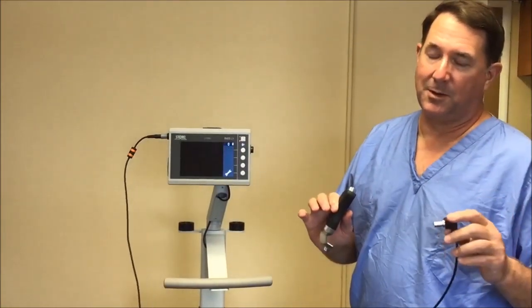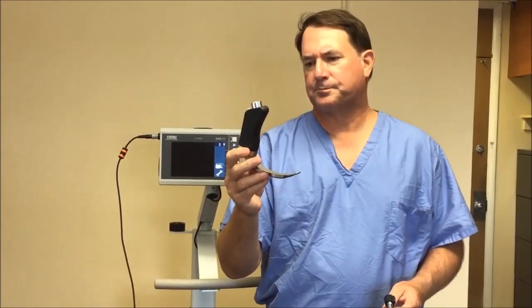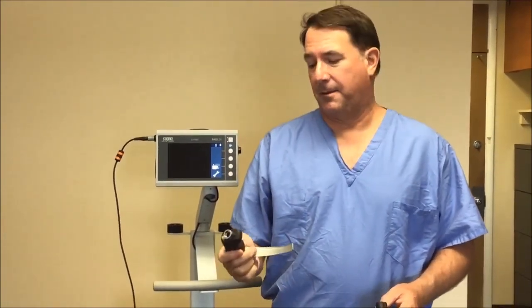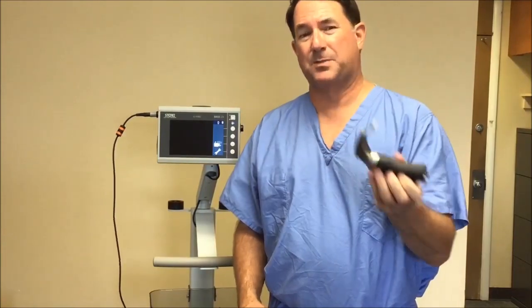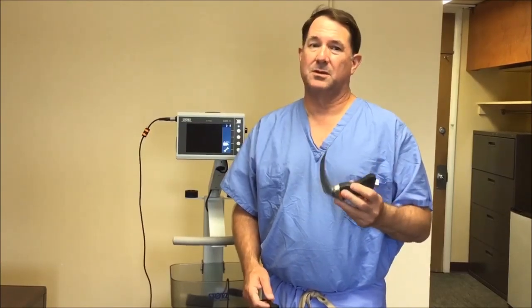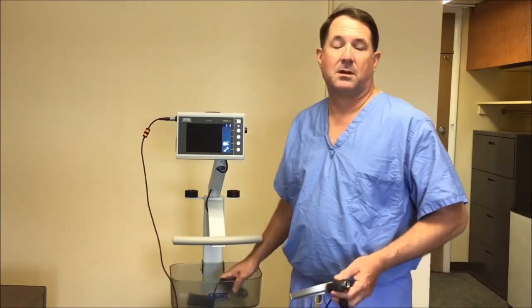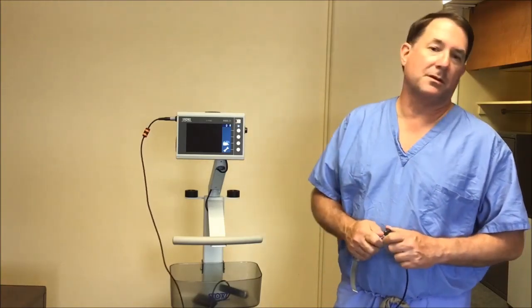To summarize: if you want to use the new device, you have to use one of the new blades. We'll have either three or four number three blades and three or four number four blades. This type of blade is plentiful around the medical center — anesthesia uses this exclusively — so we shouldn't run into the shortages we've had with the older blade versions. The older devices are fine to use; the picture is just not quite as sharp.